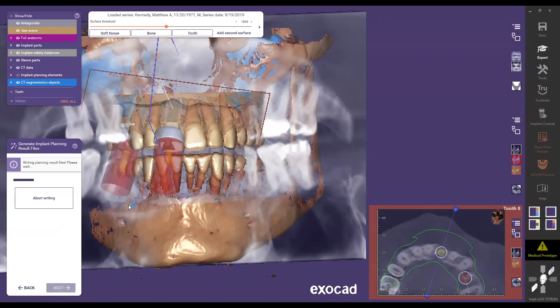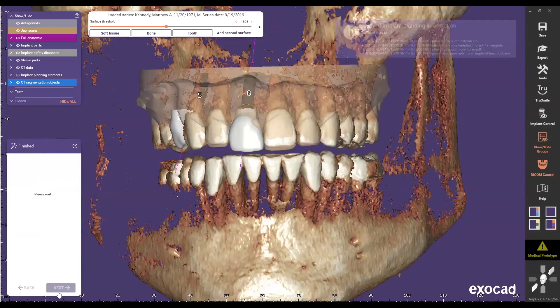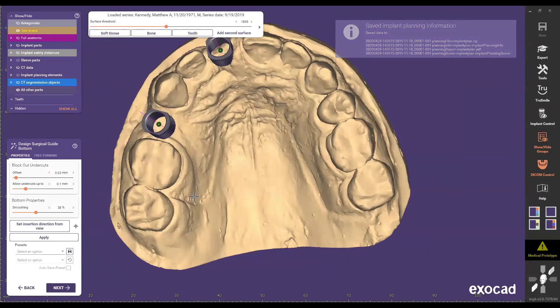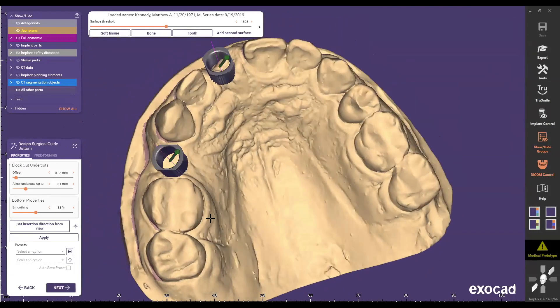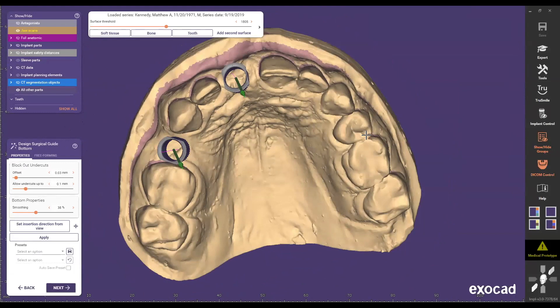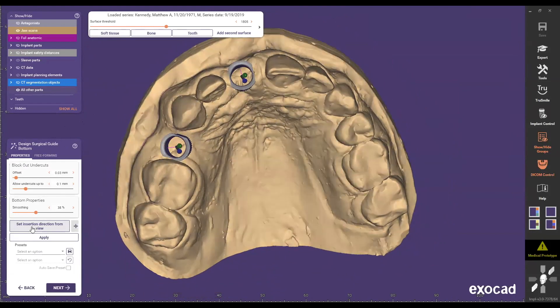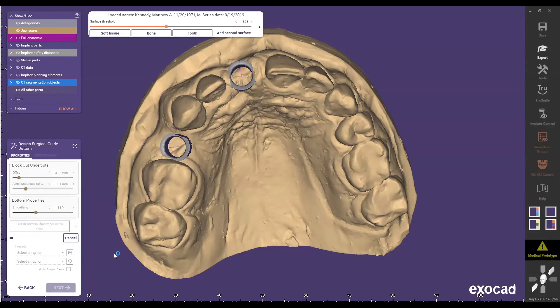Skipping past report generation which was already shown, Dave moves to designing the surgical guide — where Matt left off. The path of insertion is visible, and there are a few more features visualized in this latest release. Matt recommended setting the offset at 0.08 as a starting point, which is a good recommendation. The snap-fit produced by the allow-undercuts section is also highlighted.